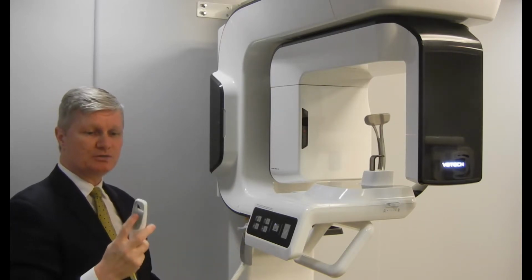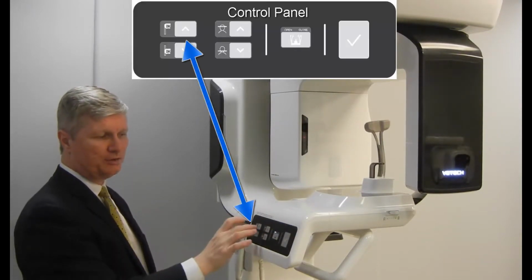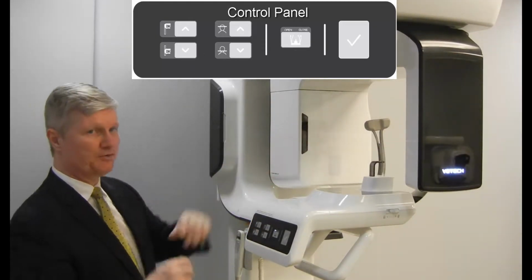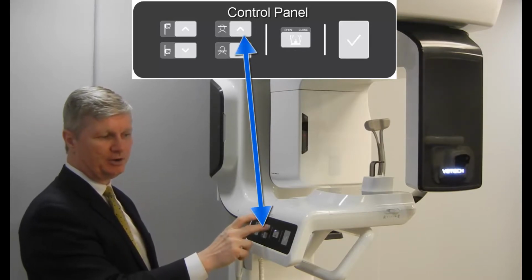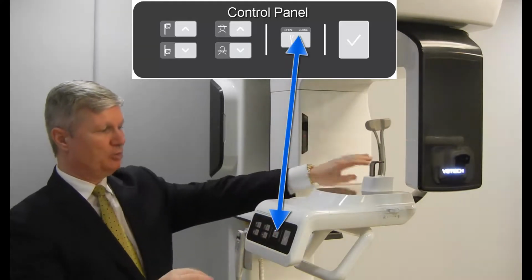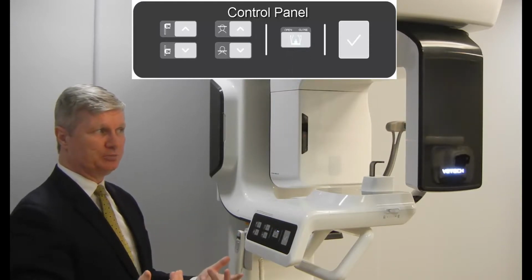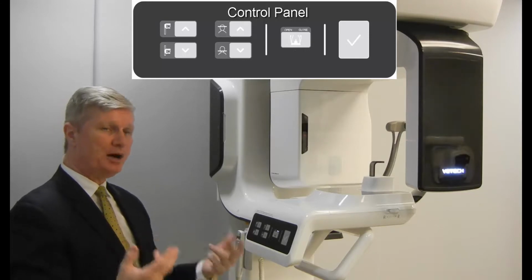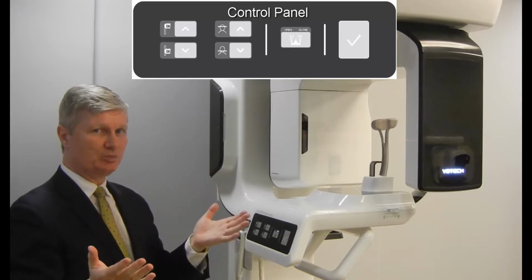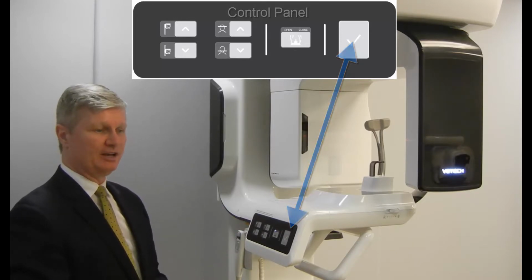There's an elevator button here as well to raise and lower the device, which is also available on the front control panel here. So continuing with that, we can raise and lower the device using the left-hand buttons. In order to adjust the Frankfurt light for both 2D and 3D, we have the elevator button here for that, and to lower the Frankfurt light. The next button here allows you to open and close the temporal rods automatically for you. Close them during image capture. When image capture is completed, the temporal rods will open up automatically, but in the event you do need to take the patient out before image capture, clicking the same button again, the temporal rods will open up. The last button here on the right-hand side is a check mark to put the device into capture mode itself.